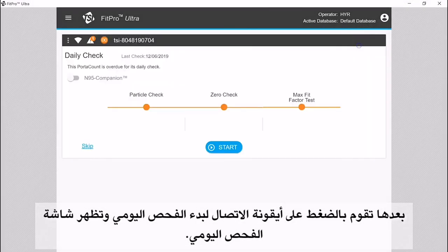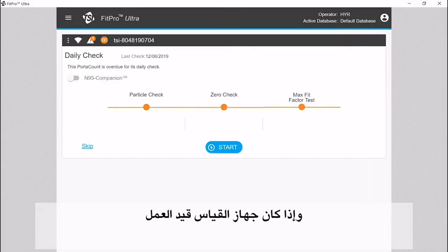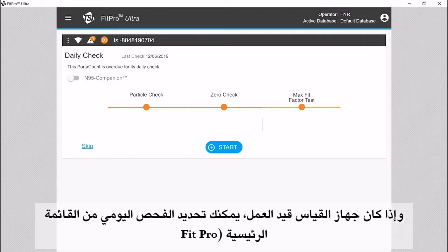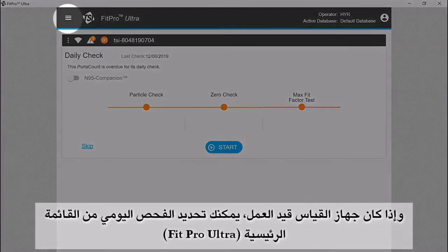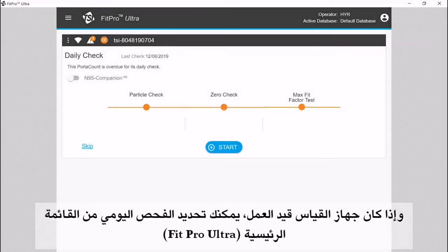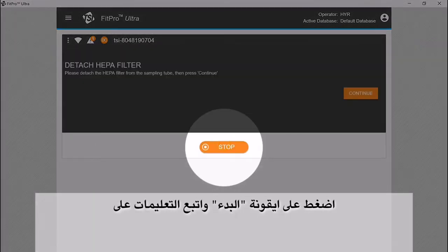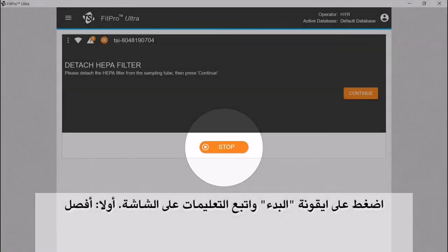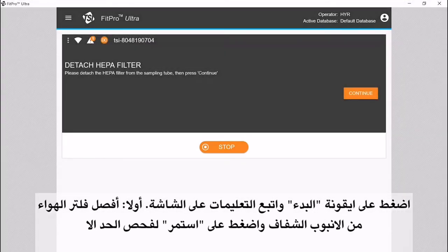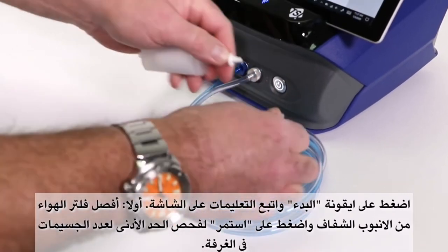The daily check screen will be shown, or if your PortaCount is already up and running in FitPro Ultra, you can locate and select the daily check from the FitPro Ultra main menu. Press the start icon on the daily check and follow the prompts on the screen.